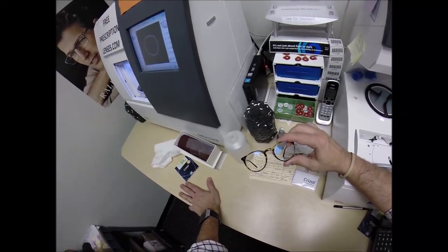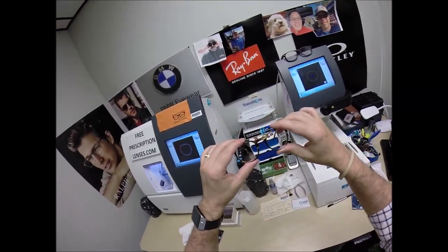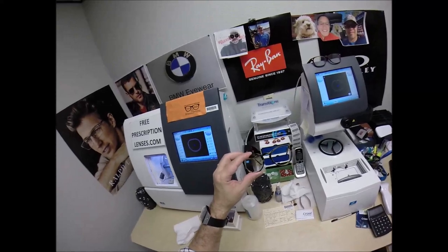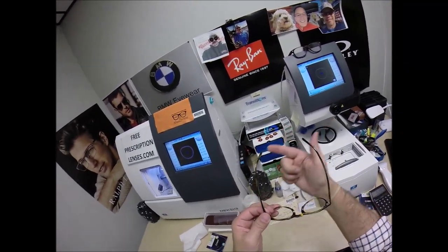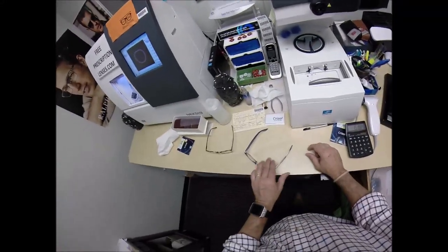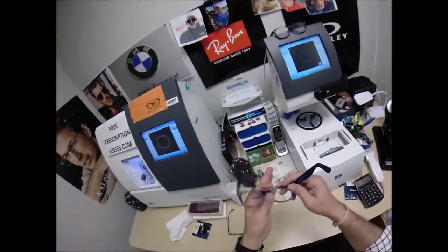When you get these in the mail, there's a small chance that these could fit too loose or too tight. However, there's an 80% chance that one side is going to sit higher than the other, because 80% of people have one ear that is higher than the other. Because of that, 99% of all optical shops will do free adjustments if you ask them. But I'm going to get them in standard alignment first, also known as a three-point stance — three points are the two temples and the bottom of the frame being three. I set them on the counter and press down. There is no wobble.